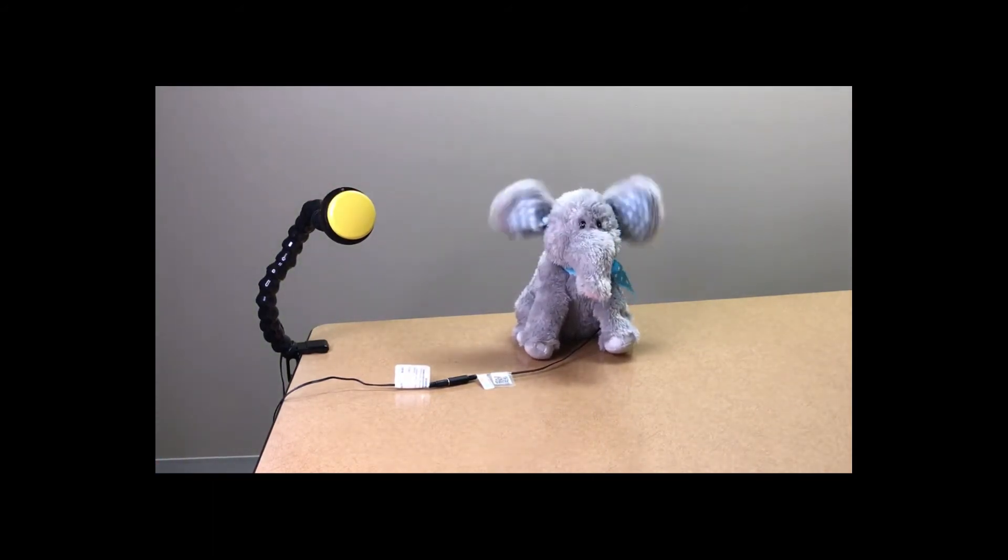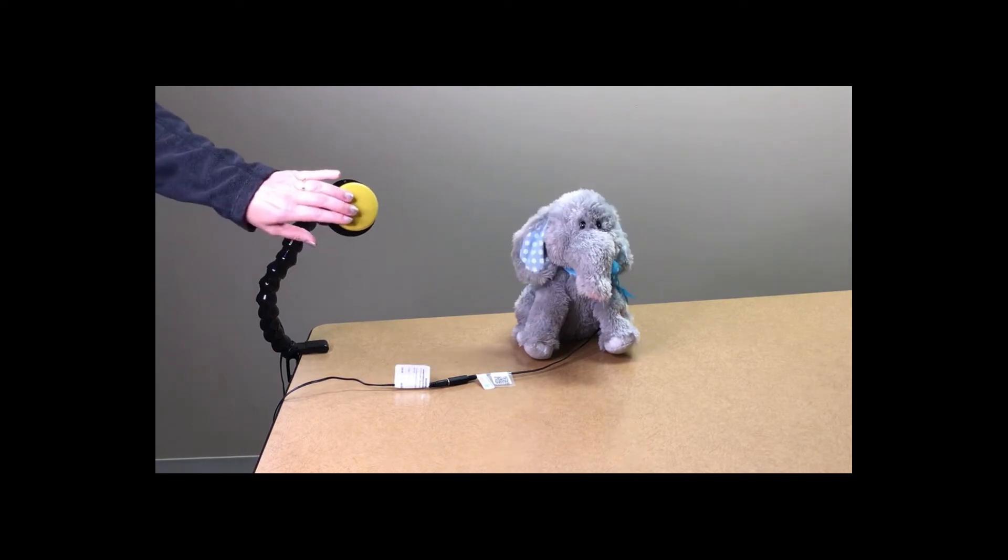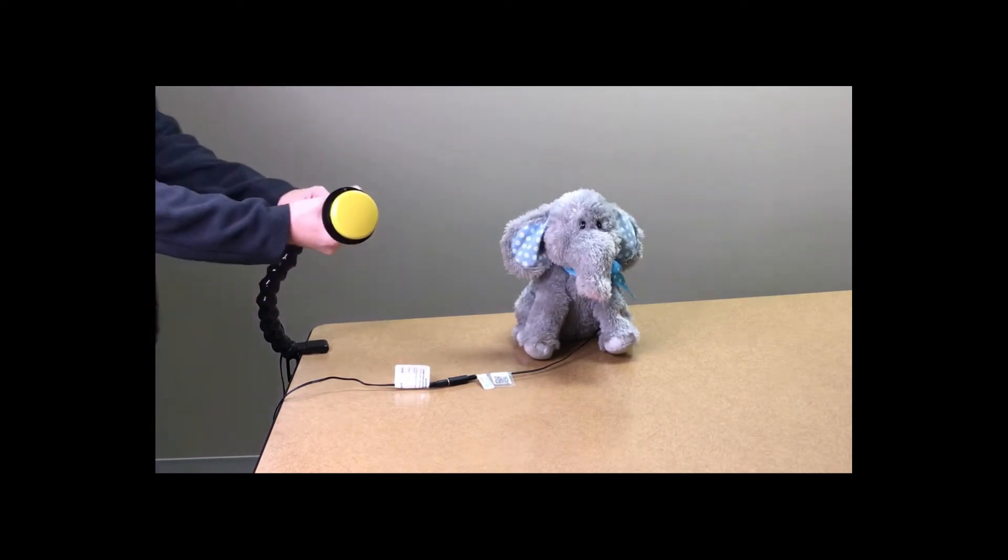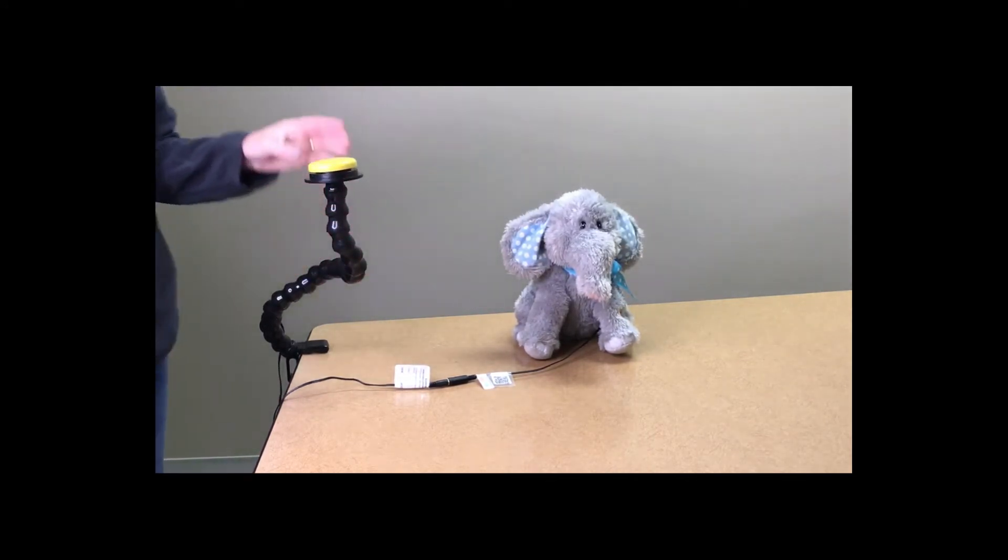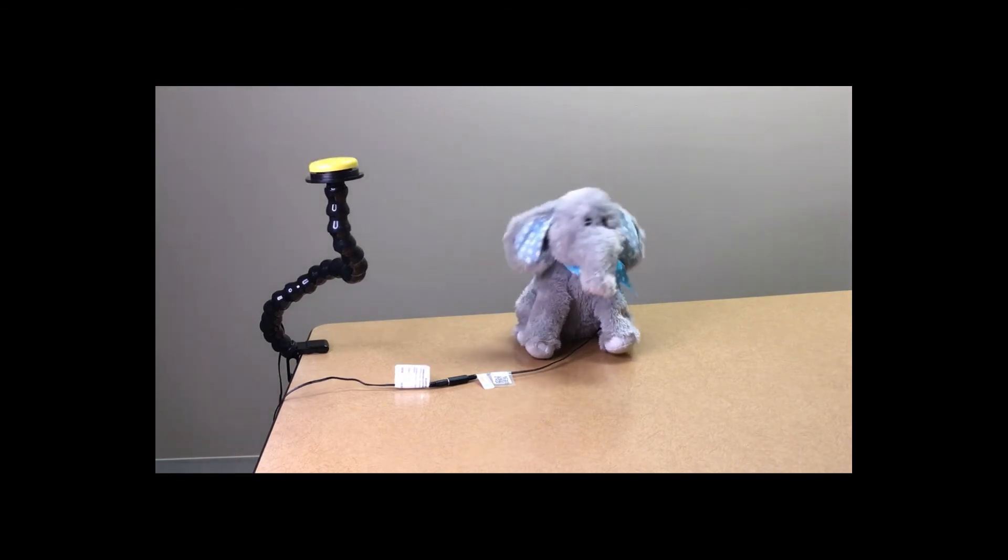Press anywhere to activate the switch and watch your toy or device come alive. The toy or device will remain activated until the switch is released.